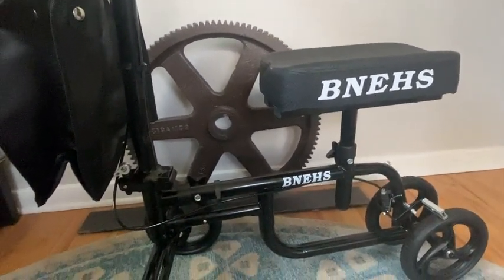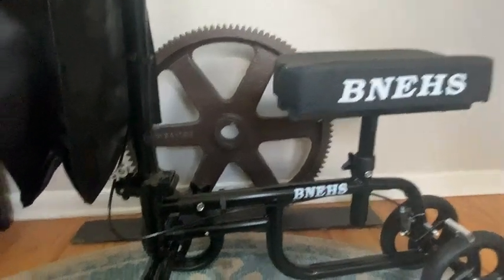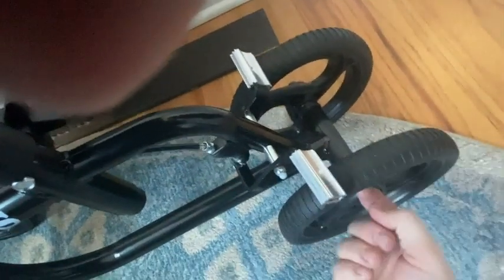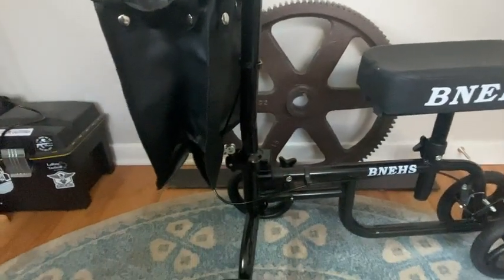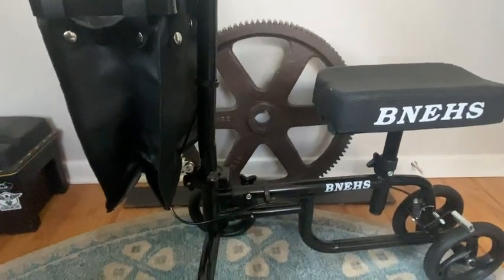What's really safe about it — I think a lot of other ones don't have this — the tread on the wheels is very, very grippy. You can see how the brake pads aren't actually hitting the tire; they're hitting these notches, and the opposite side looks exactly the same, so it catches those. The brakes are very, very responsive, so hopefully he likes this and it's better than crutches for him.